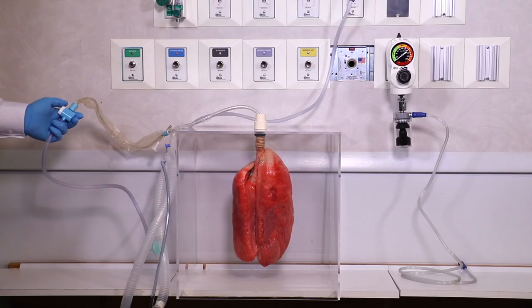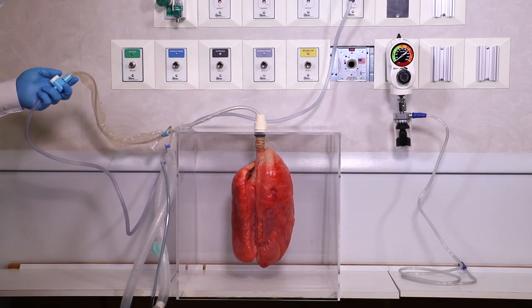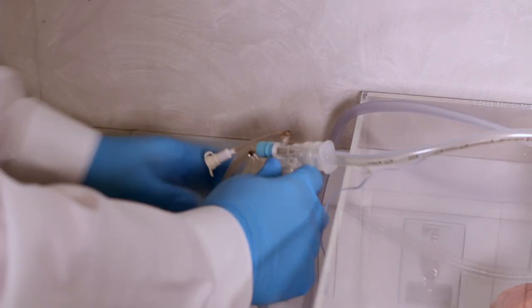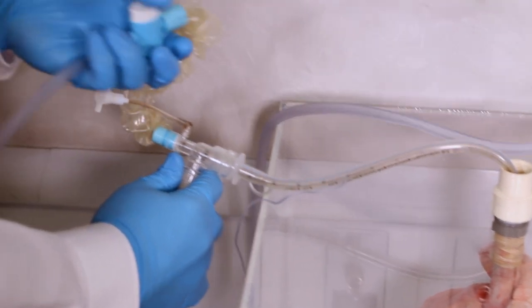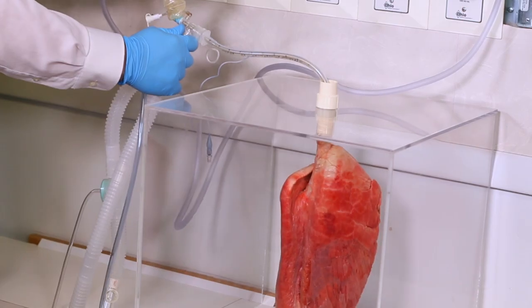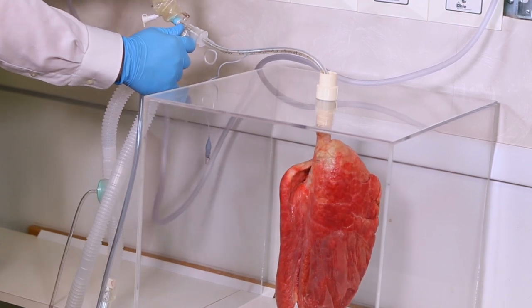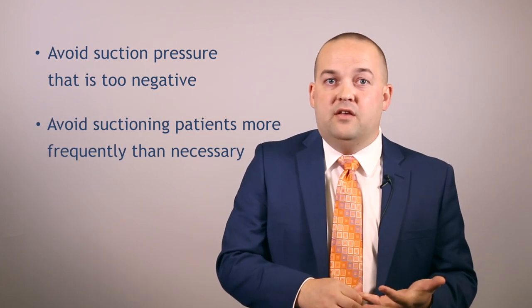I want to demonstrate how powerful full wall suction pressure can actually be. I'm ventilating a set of real pig lungs here with a mechanical ventilator on settings you would find on a patient with ARDS — a low tidal volume and a high PEEP of 20. You can see the lungs are inflated during ventilation. I'm going to advance the catheter, apply suction at full wall for just a few seconds, and I want you to watch what happens to these lungs. As you can see, just a few seconds of full wall suction pressure will completely de-recruit the lung.